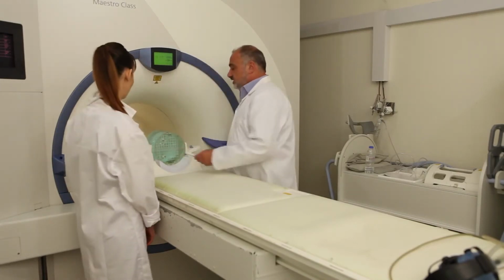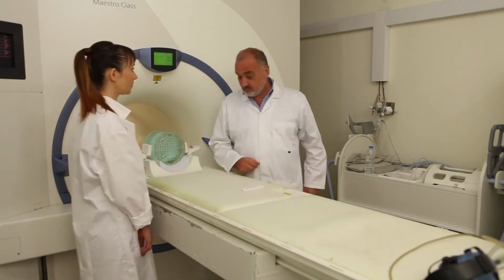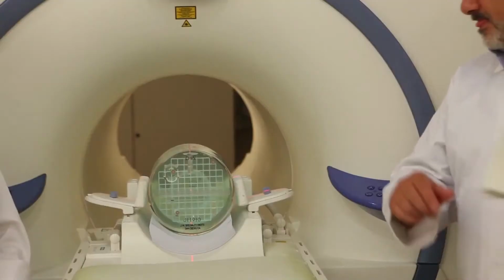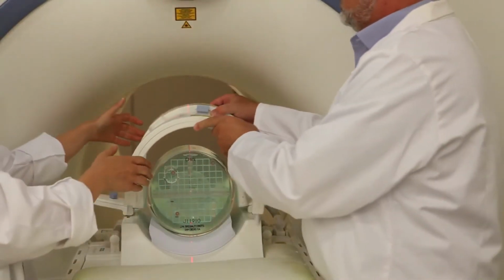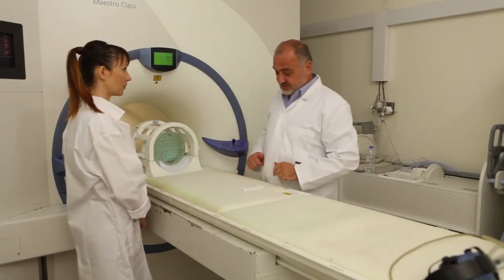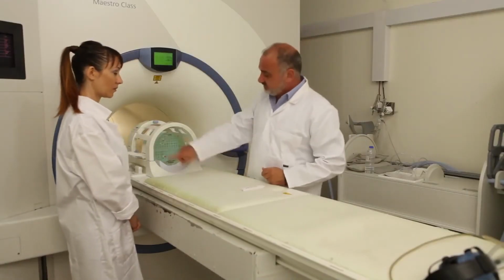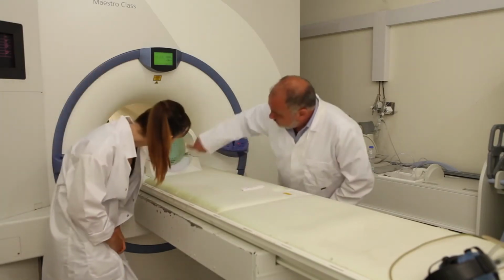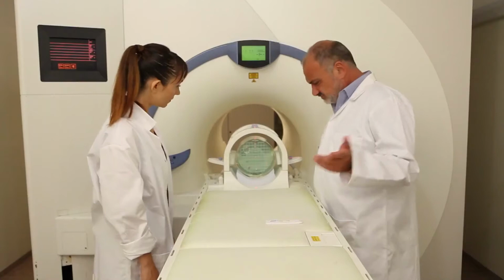That's all right. And if everything is okay now, it's time to actually cover the rest of the coil with the extra part of it and close the head coil. A good view now, prior to start, is that this whole cylinder is at the center of the extra cylinder of the phantom. So if you check with your own eyes, this is going to be at the middle of the cylinder. Everything is settled.